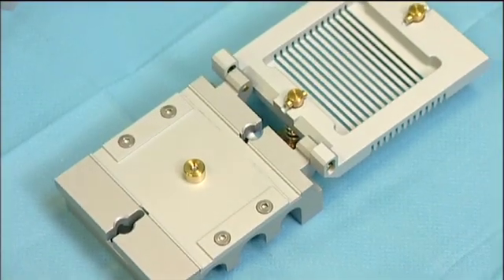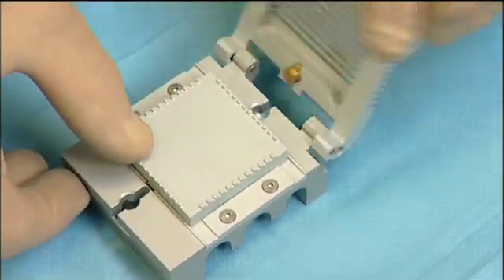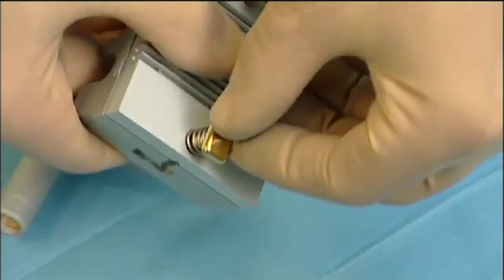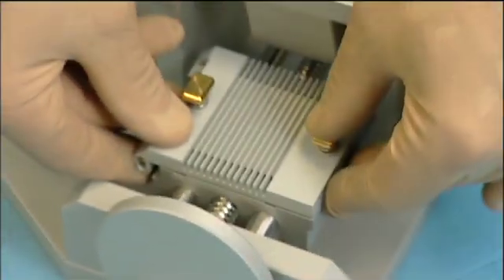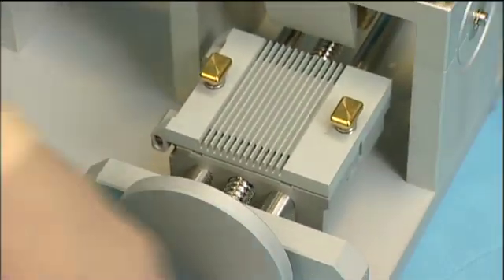The MEEK machine is provided with a cutting block which has a cover to close it. The block can only be placed in the machine one way. It should be positioned at the side of the hand wheel.